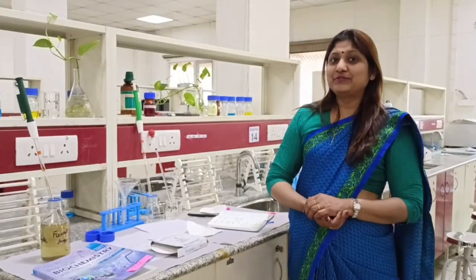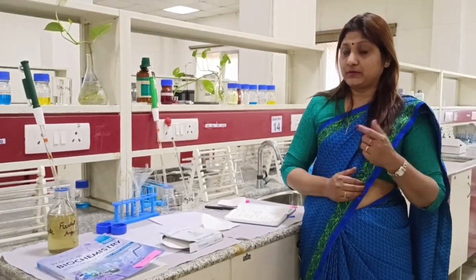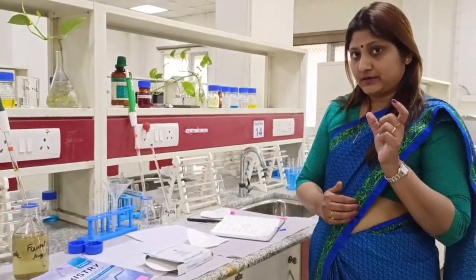Hello students, here we will teach you the Fouchet's test — how it is to be done, what is the Fouchet's test. It is a test to detect bilirubin in the urine. If bilirubin is coming out in the urine, it is of course conjugated bilirubin, because only that is soluble and filters into the urine. Everything will be covered in this short and crispy video.